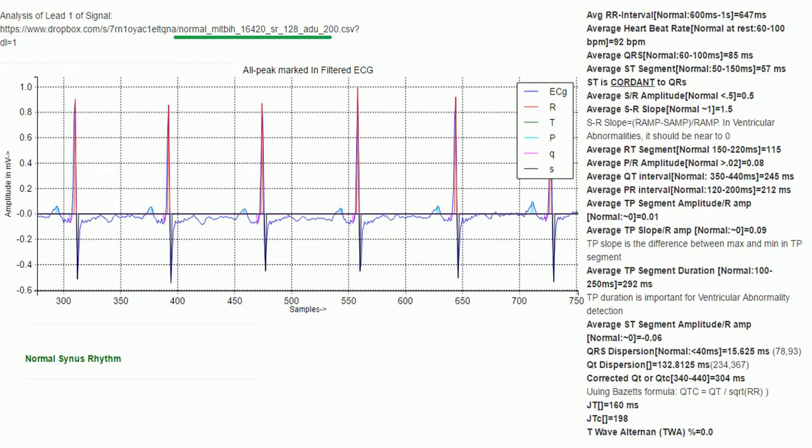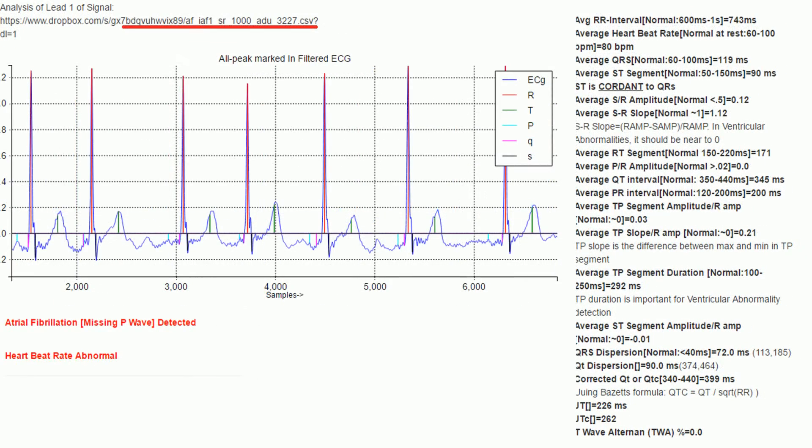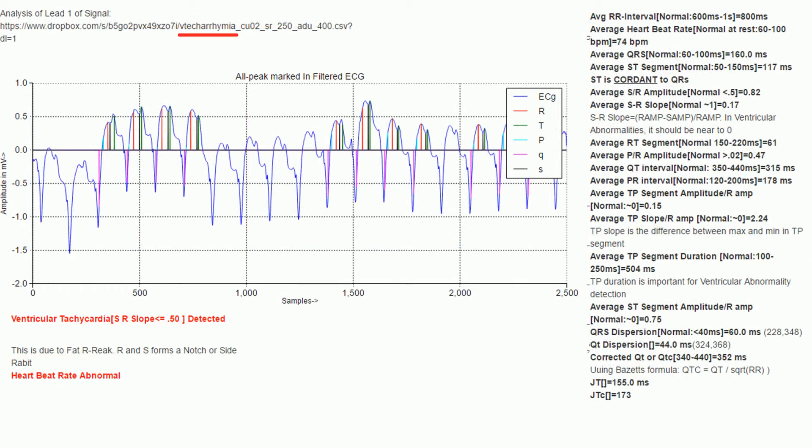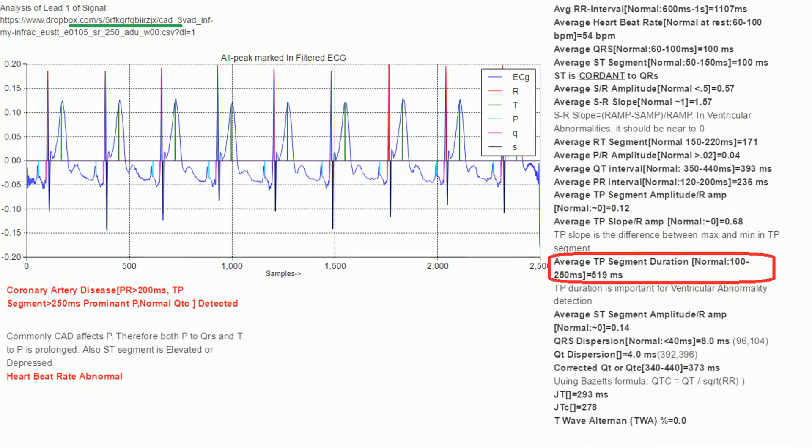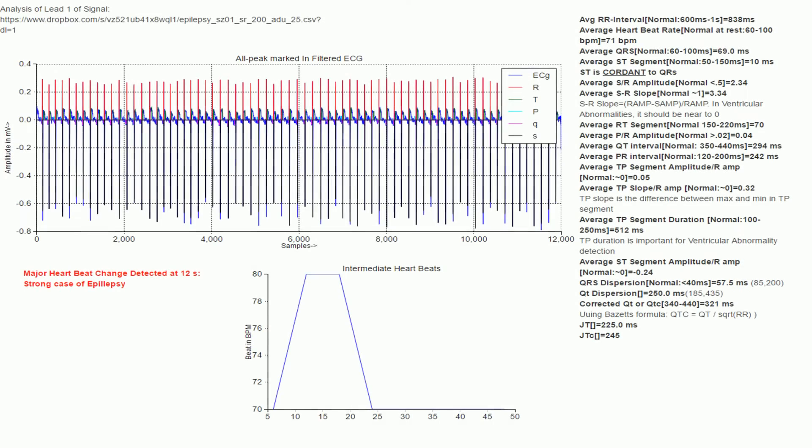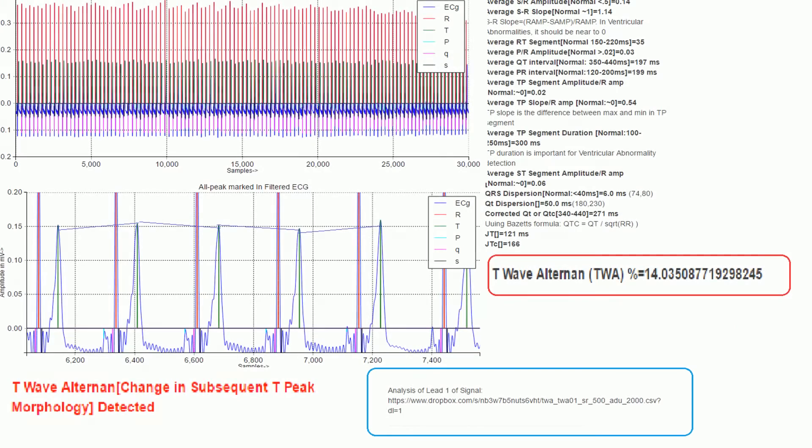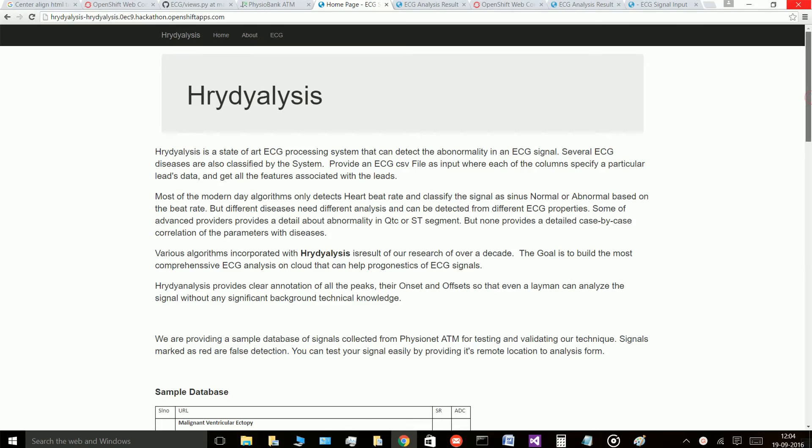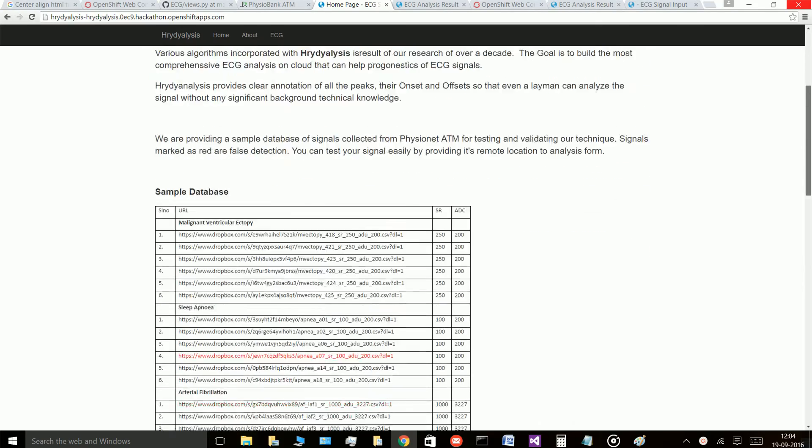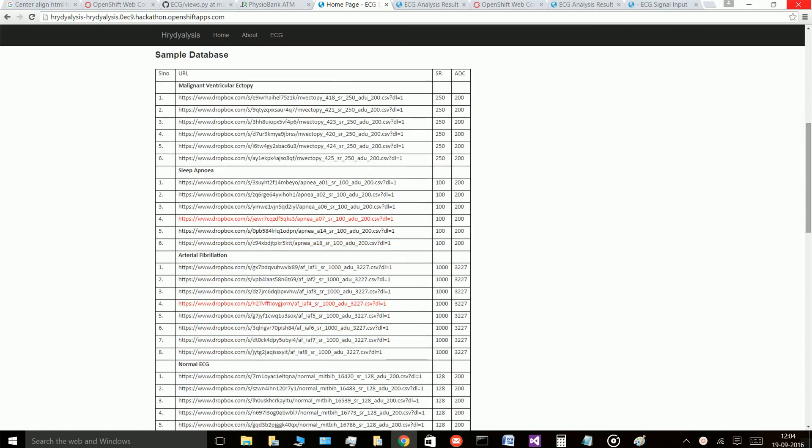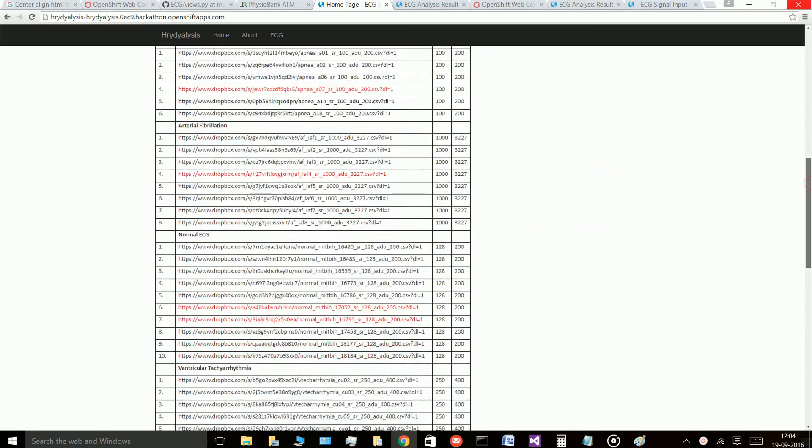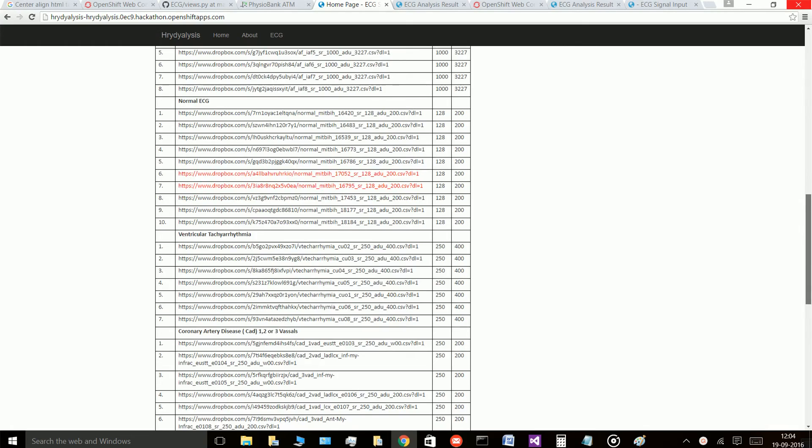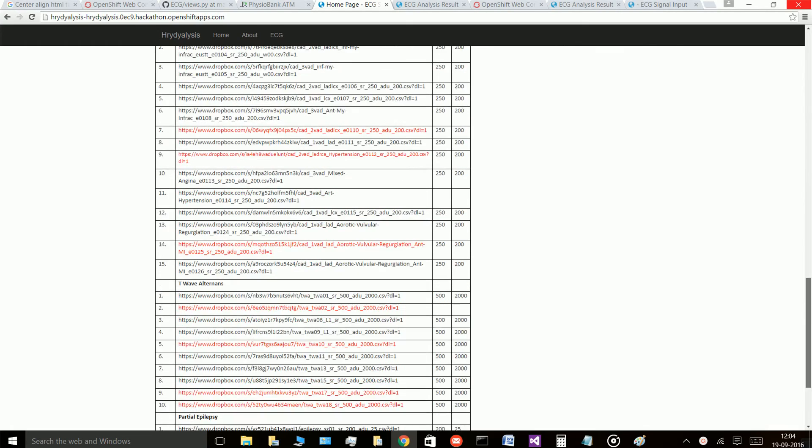Each of these parameters are presented in an aggregated way. It then forms an unparalleled diagnosis system based on the best cardio ECG analysis practices. It not only detects the disease but also shows the reason and diagnostic basis on which it has detected the disease. We have also provided a database of signals for you to easily test the diseases.